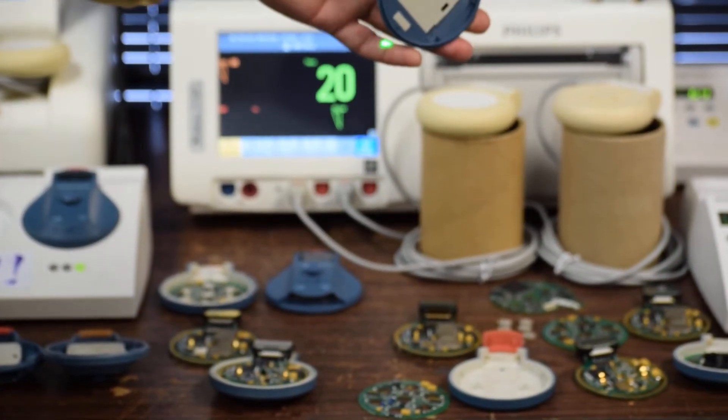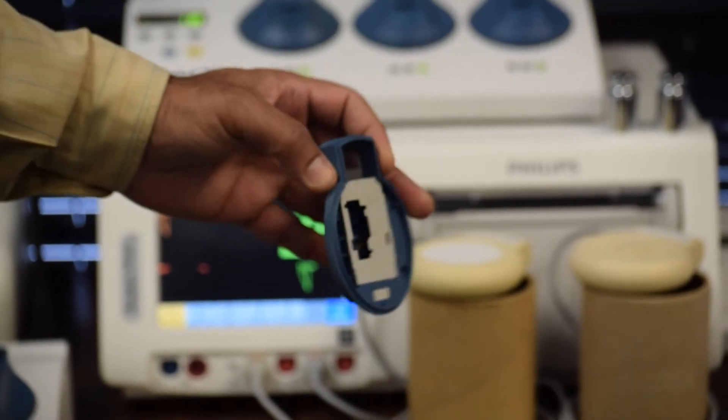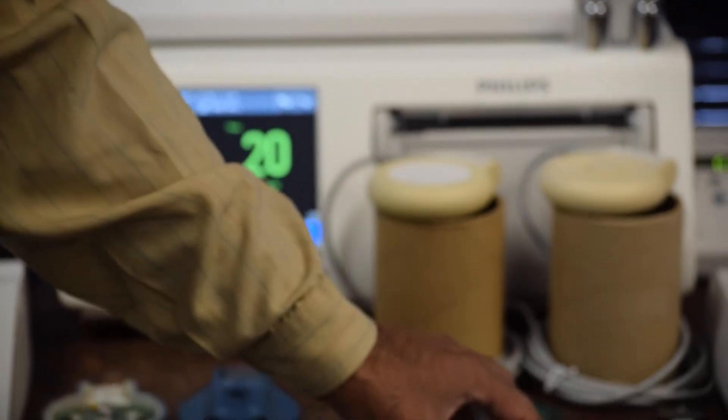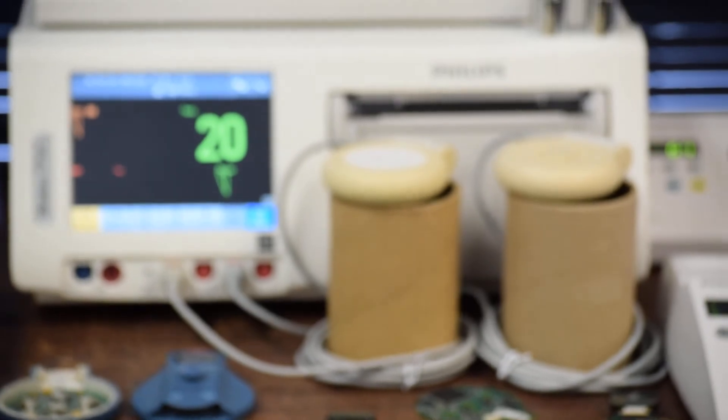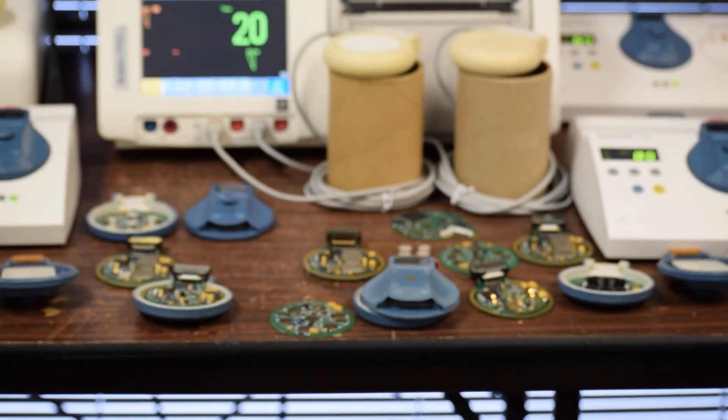This is the top case, which has been nicely opened with no damage at all. And once you re-glue it back, it will be watertight — or water-resistant.